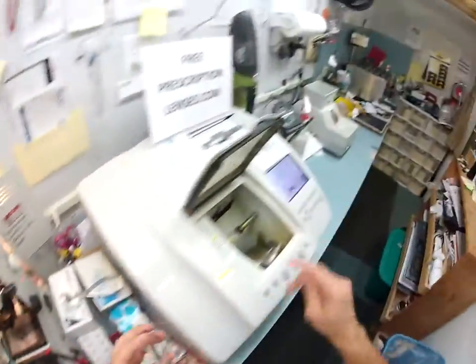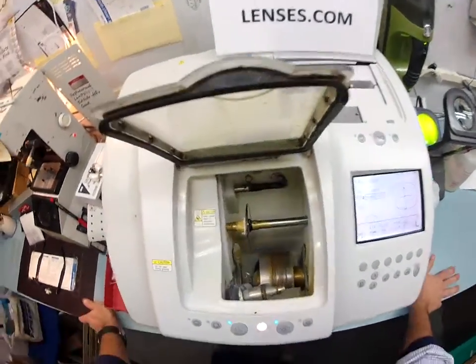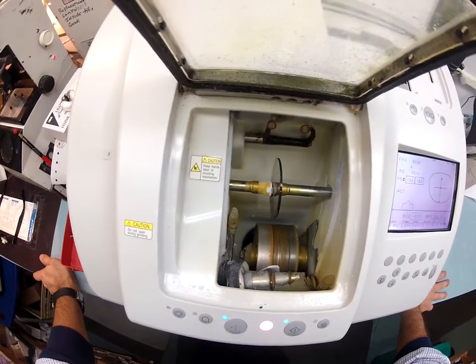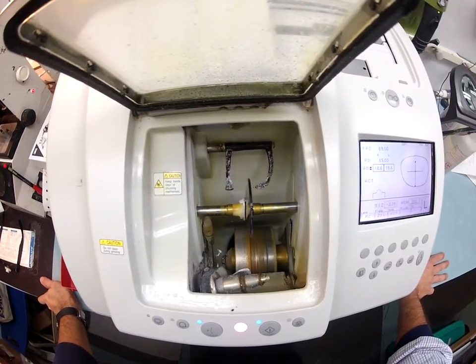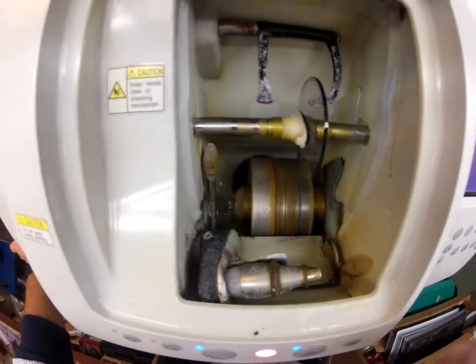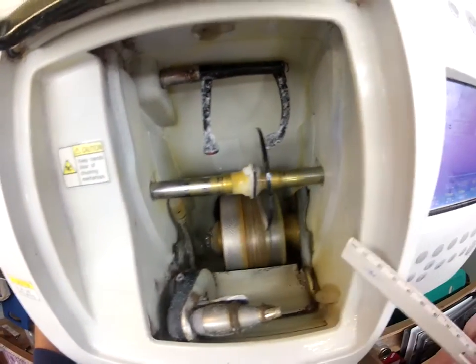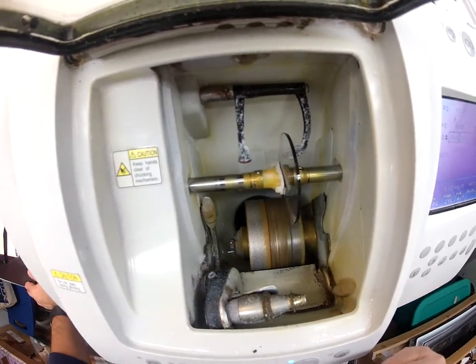Let's go ahead and cut your left lens. Flip that over to left and hit start — same procedure as before. It's going to come down and trace the shape of your lens shape onto the lens to make sure it's large enough to cut out. And if you didn't get a quick enough look: the cutting wheel is on the left, this is the channel where it grooves and puts the knife-like edge or the oyster shell-like edge — that's what puts the bevel on. This is the polishing wheel, which I usually use on semi-rimless.